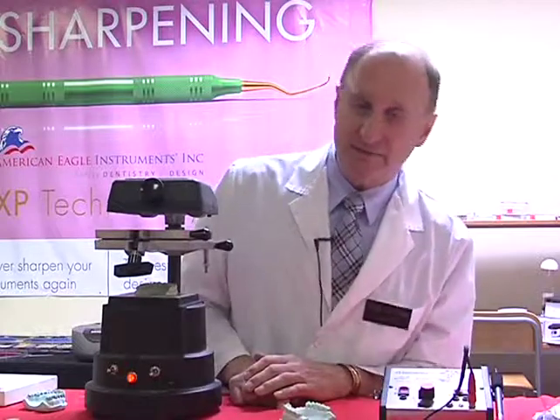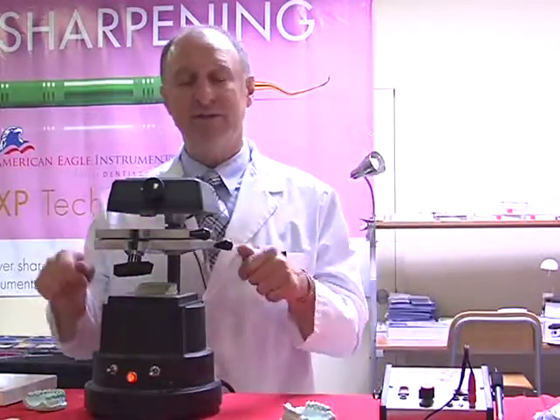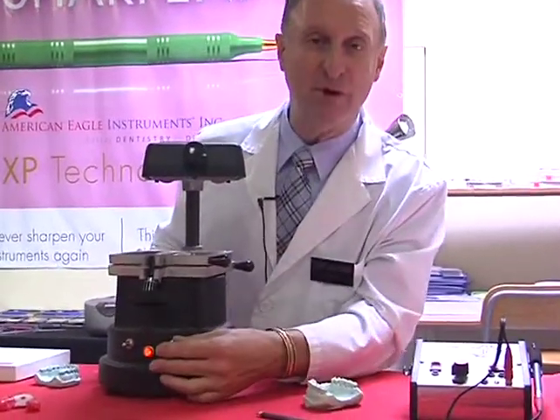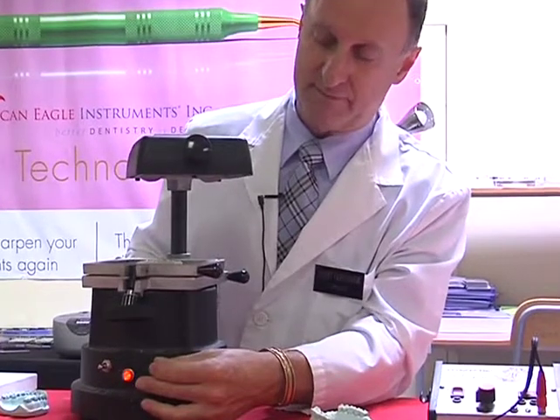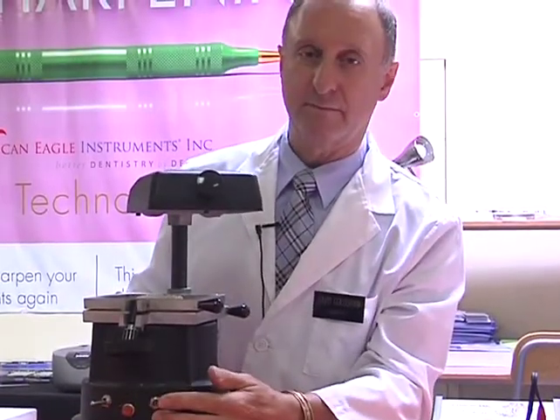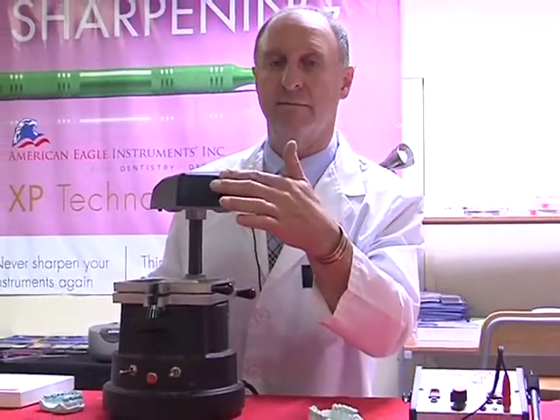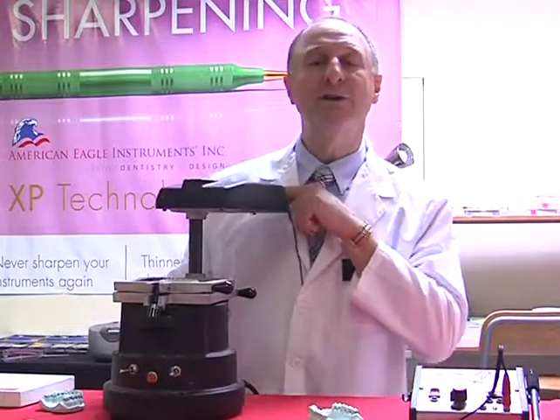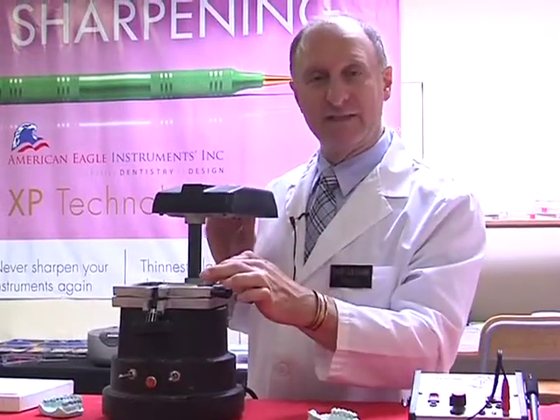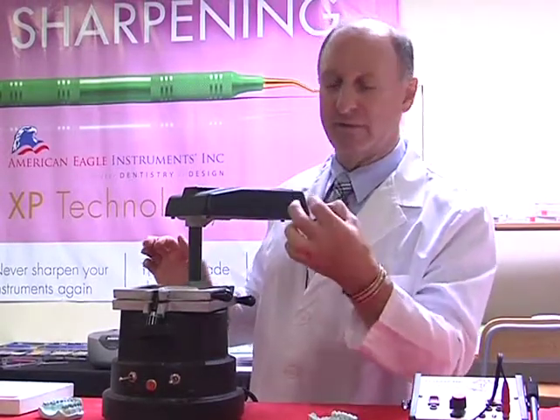We've now achieved enough time. We've now got a 1/4 of an inch drop. At this point, rather than turning the machine on, I'm going to lower this down over and turn the vacuum on. I normally allow a good 20 seconds for the vacuuming to take effect, and this is to ensure that I'm going to get perfect adaptation over the model.